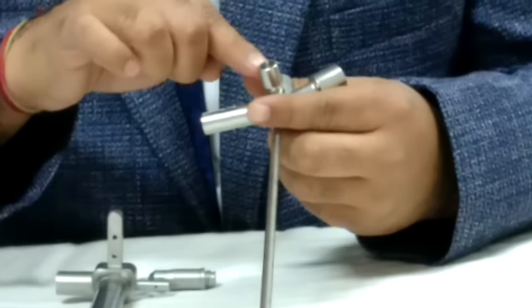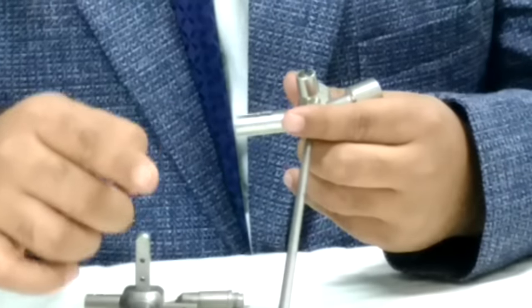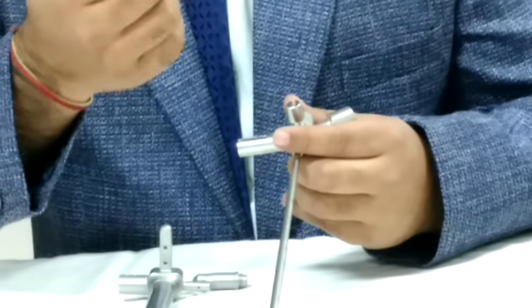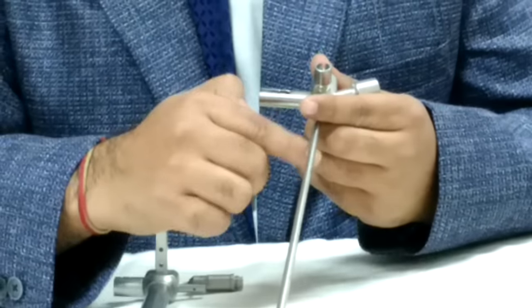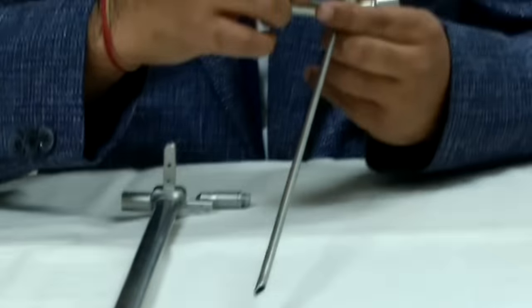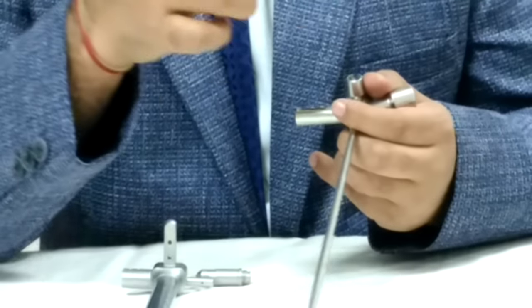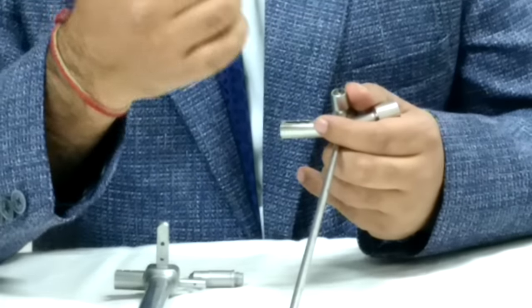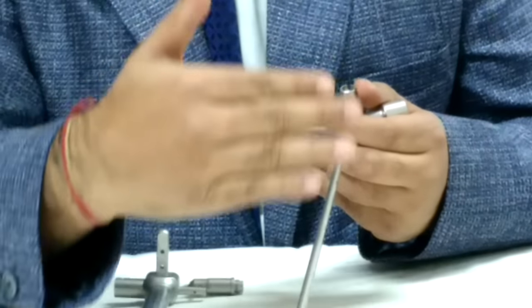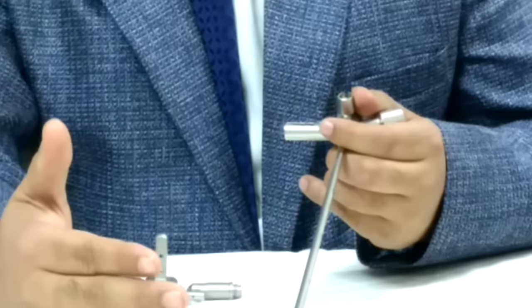So there is a vent available in this bronchoscope for jet ventilation. Jet ventilation means pressure ventilation will give through this port and through these vents. So an anesthetist will be there, they will attach their jet ventilation probe here, they will give jet ventilation in between, they will keep on ventilating the lungs.